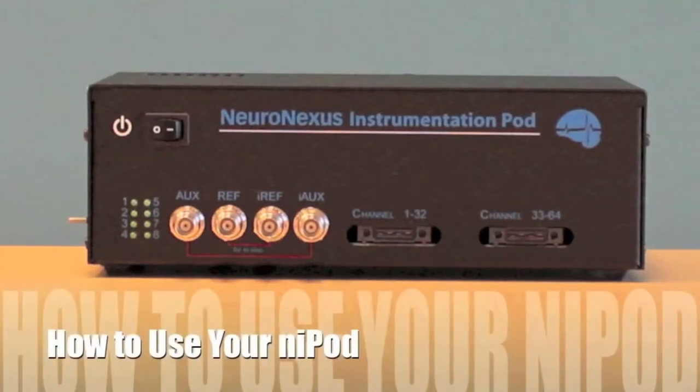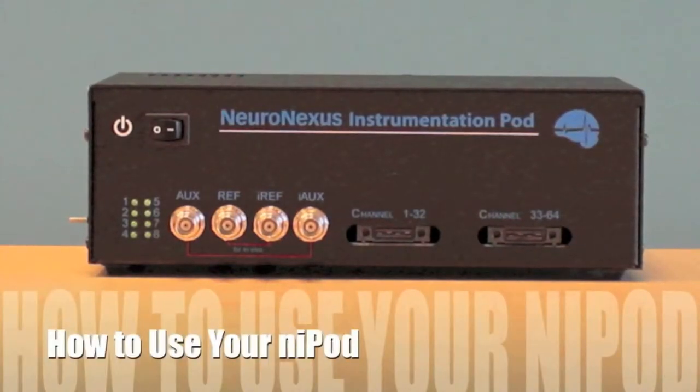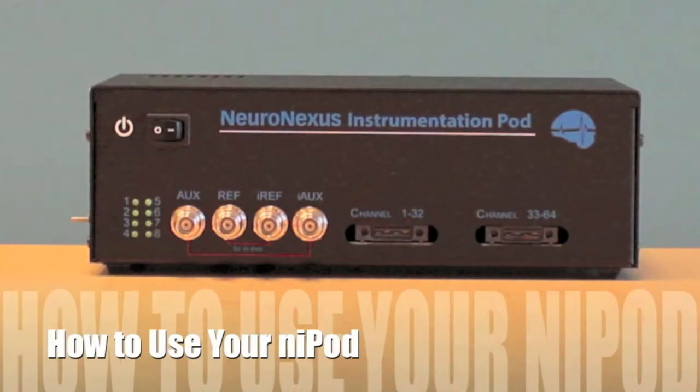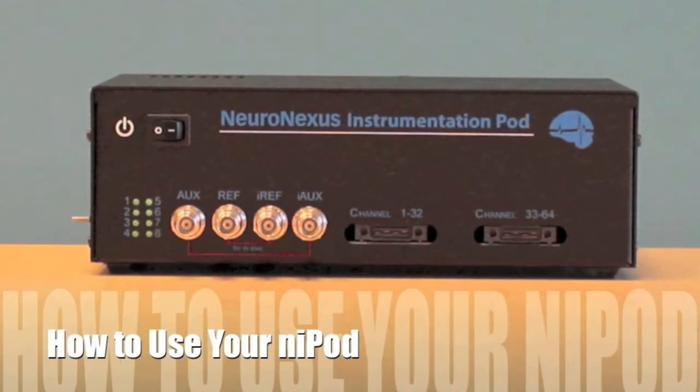In this video we will show you how to set up and use your Nipod. We will begin by showing you the calibration dummy setup, then we will show you how the in vitro setup works with a real probe.